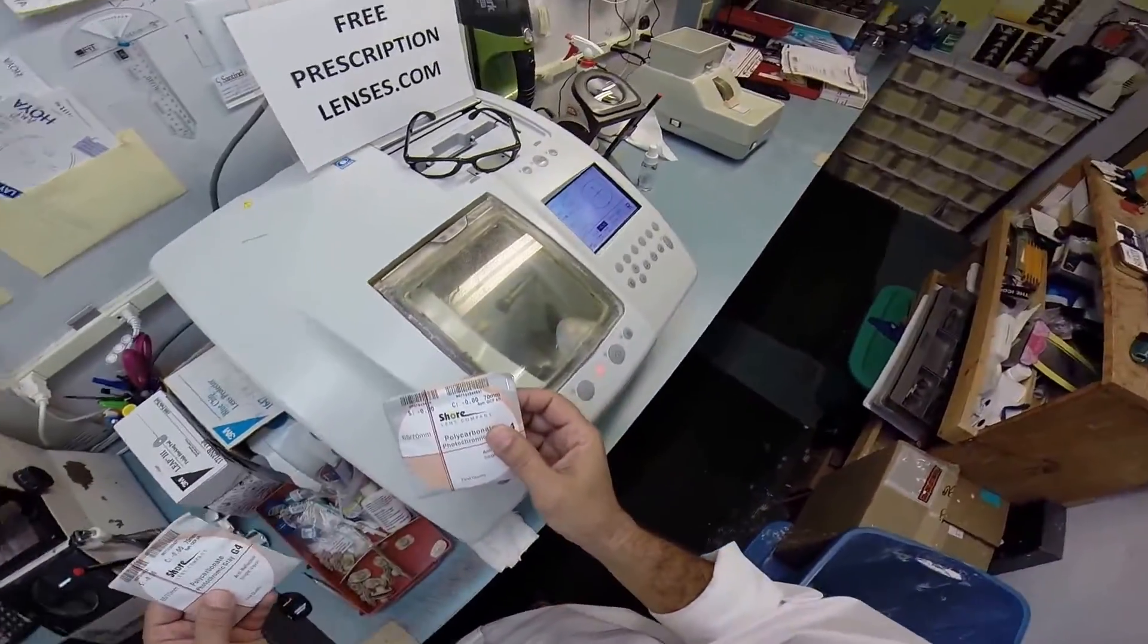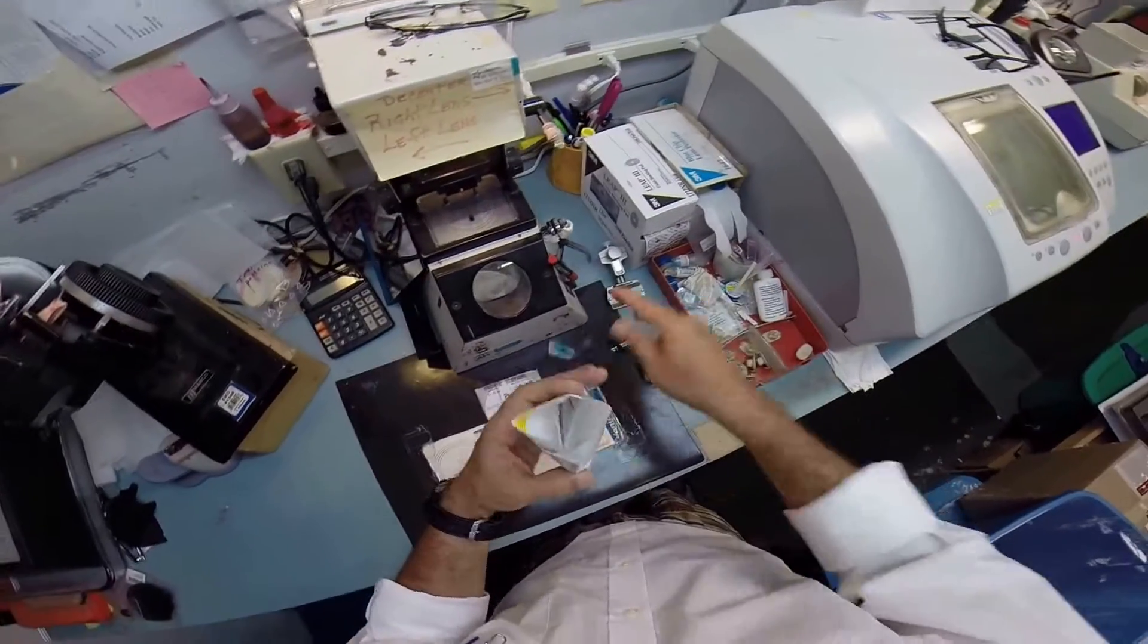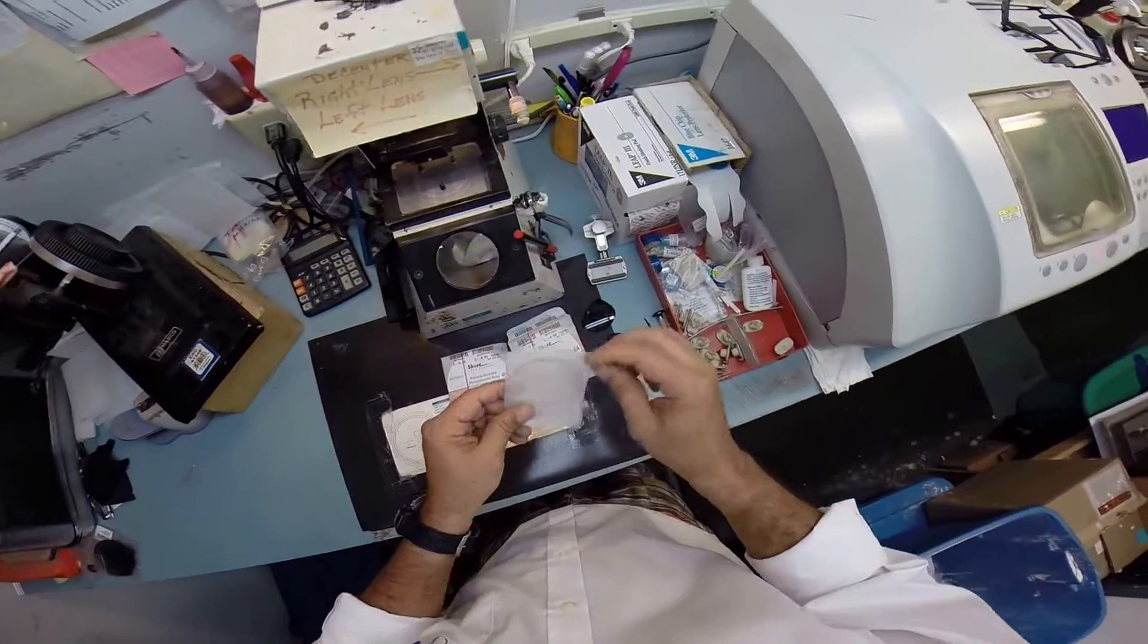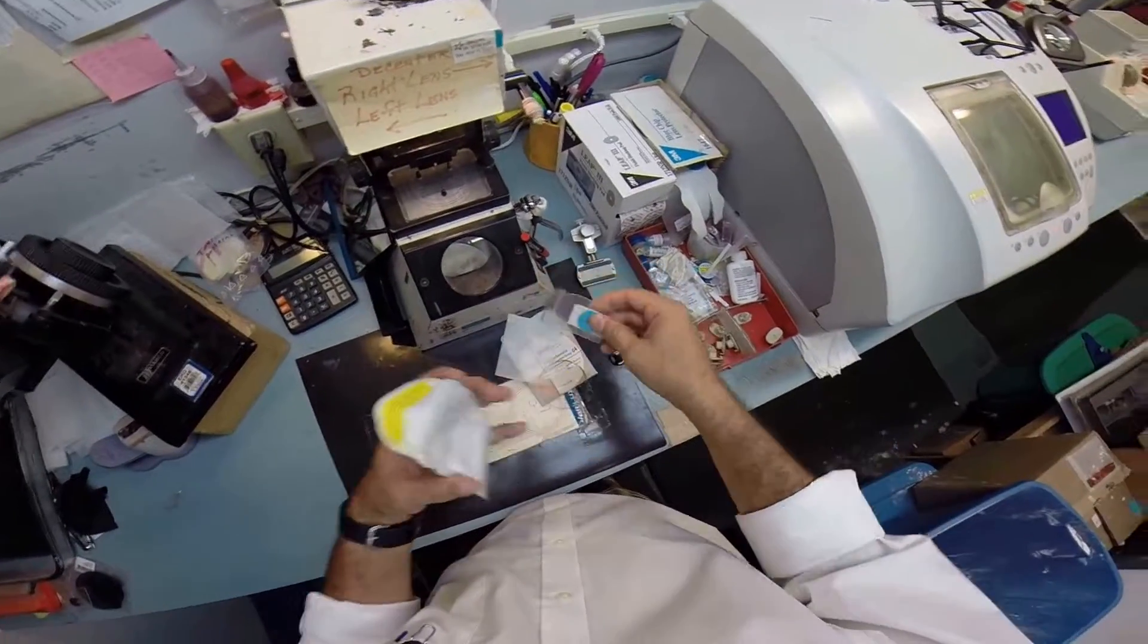These are his lenses inside of the protective sleeves. I will take them out now. Let's do the same thing for the other lens.